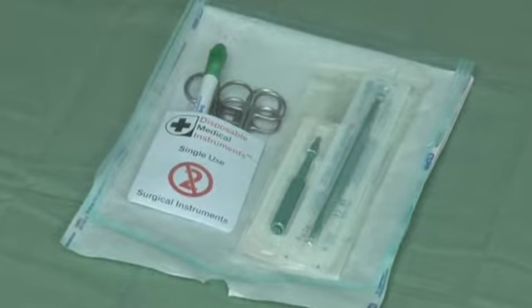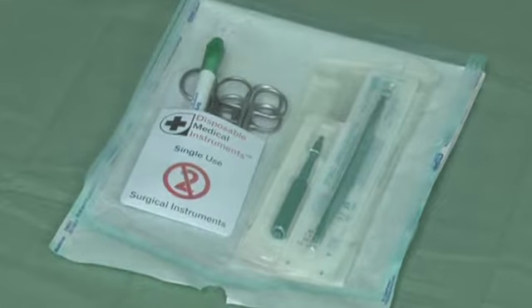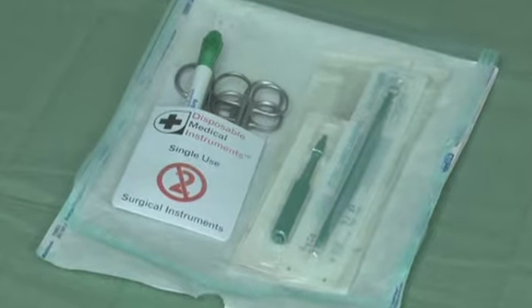When you first receive your kit, it will be pre-packed like this. All instruments will be conveniently located for the whole duration of the course.